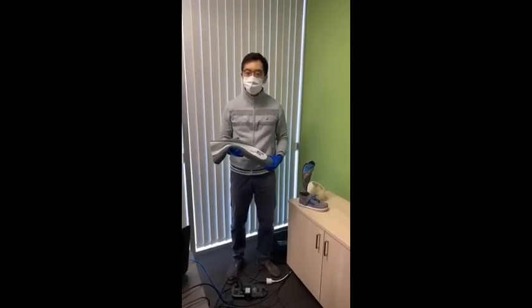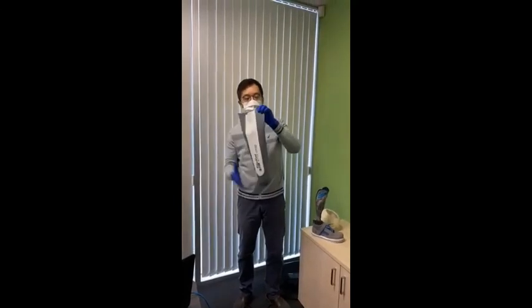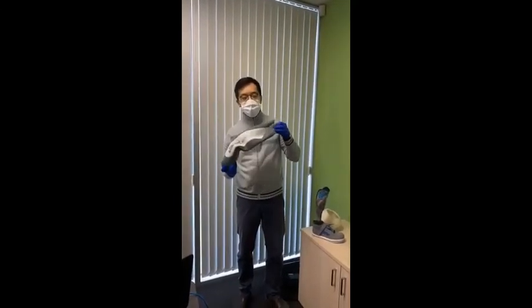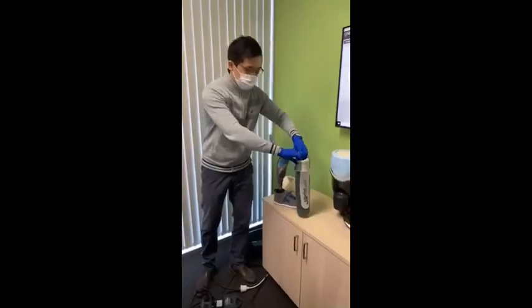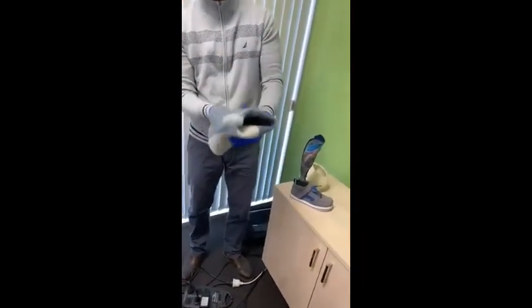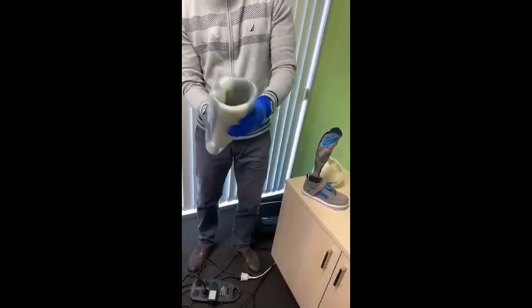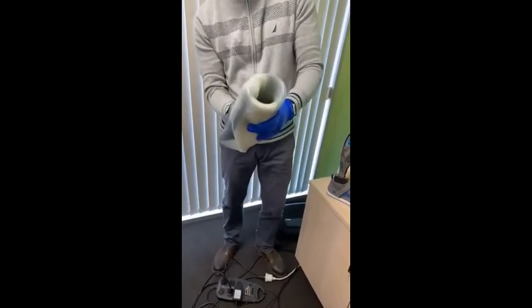I thought I would take this opportunity to focus on what the devices Anton's talked about actually look like. This is an example of a design liner. So from the outside it looks like what you would commonly see off the shelf, but one of the key differences is how the liner looks on the inside, which we'll show now in terms of the profile. So you can see the liner has different thicknesses in different areas of the liner, depending on the shape of the residuum or the patient's remaining limb.